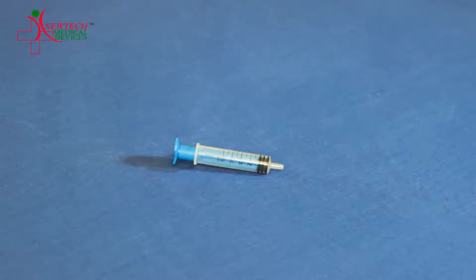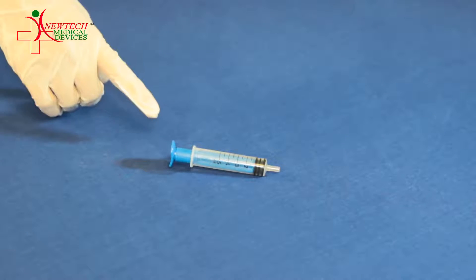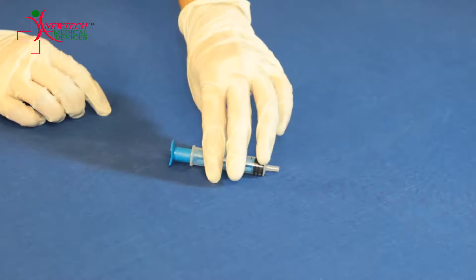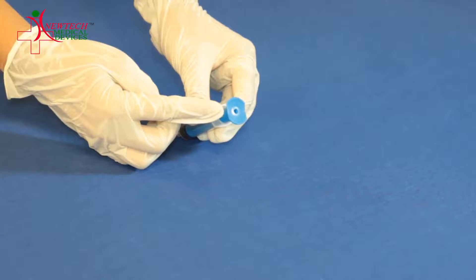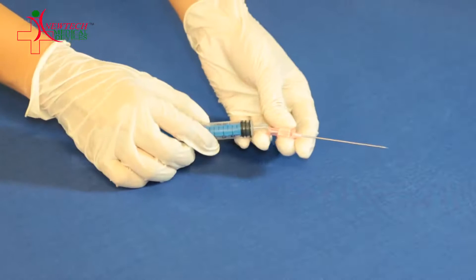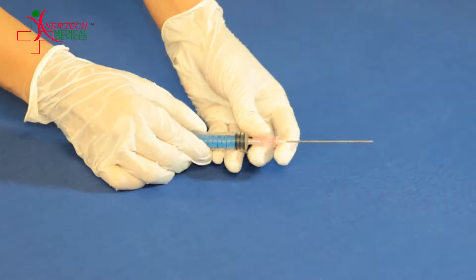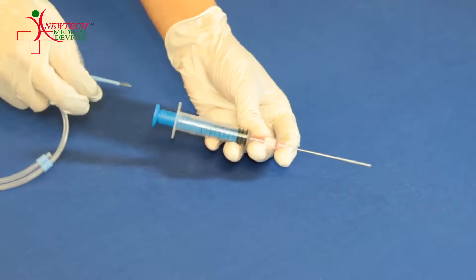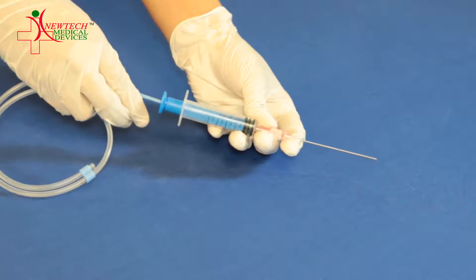This is a hollow syringe. The speciality of this syringe is the hollow path available for inserting the guide wire. Using this hollow syringe, we can easily insert the guide wire into the introducer needle without any blood loss.